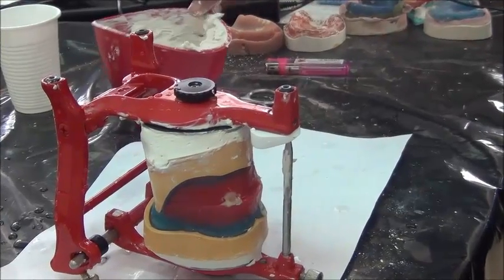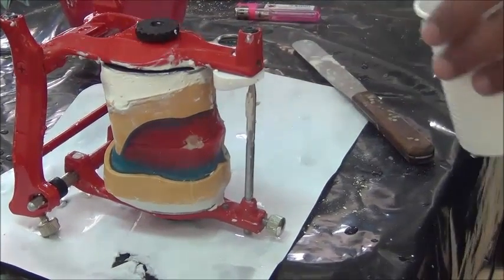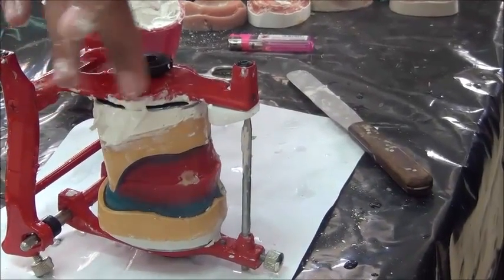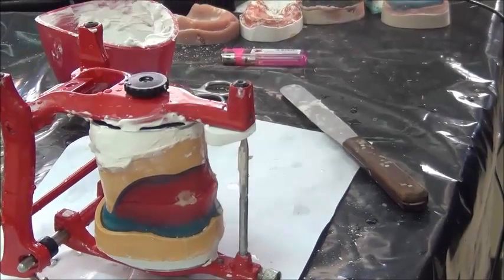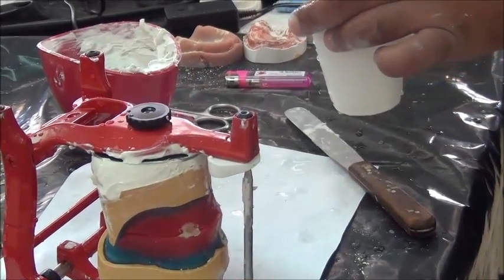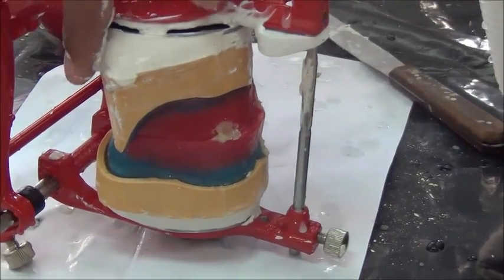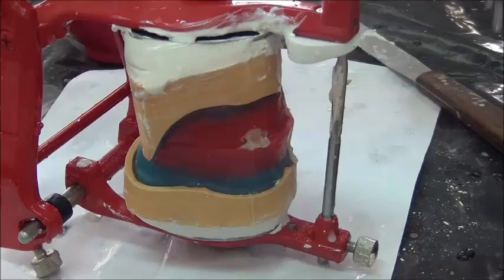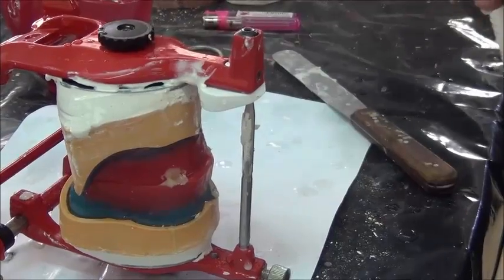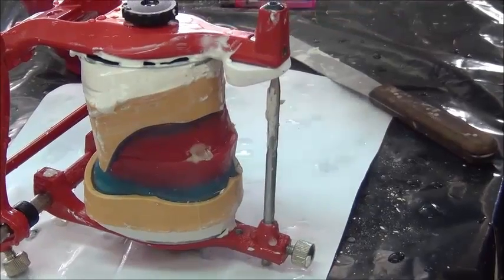Once it's smooth, we're going to wet our fingers using some water and wipe away and smooth the surfaces in between. If we have any deficiency, we could just add a bit and fill it in. We make sure the notches are filled in with plaster material, and then while wiping away the excess, we compress the plaster to the cast once more, filling in the gaps. We repeat this all around, and this is the mounted cast ready for the setting of the teeth.